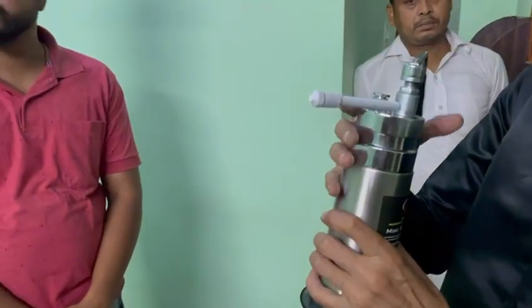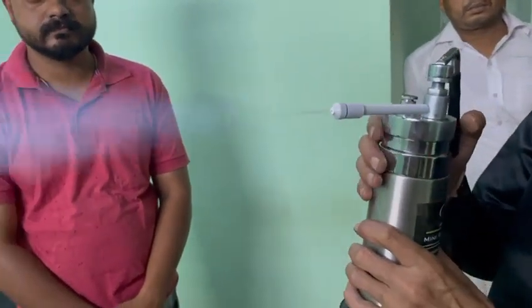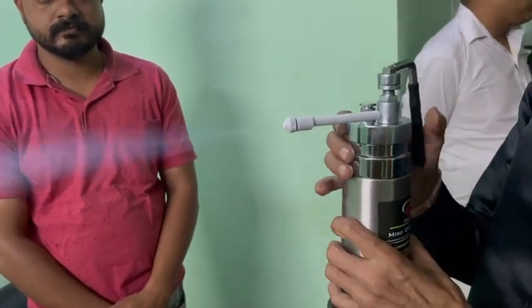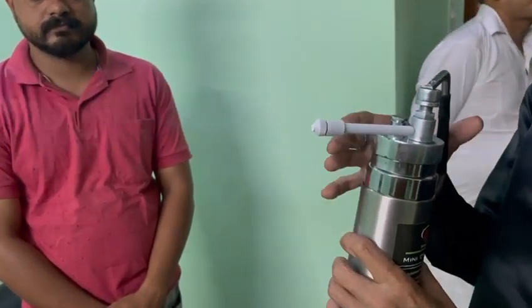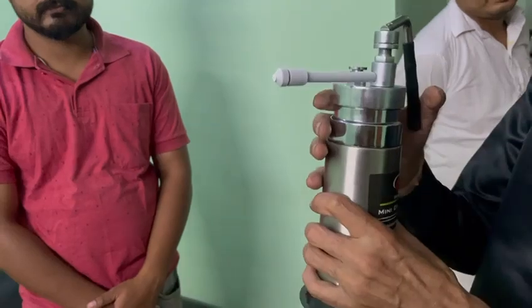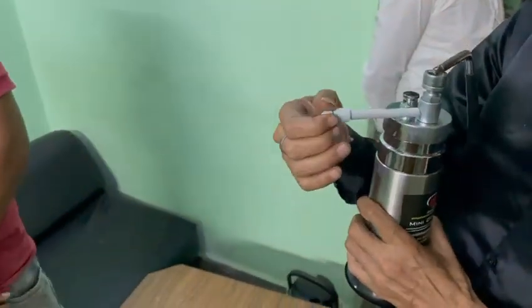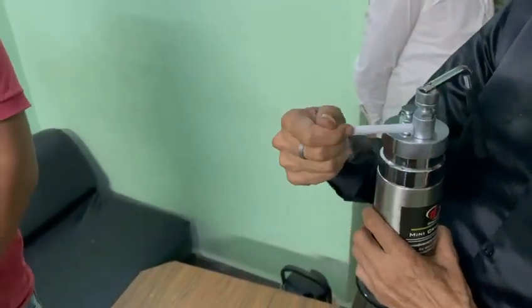Please note, we do not supply filled cryogen — we will supply only empty cryogen. Because after 10 to 15 hours, it will automatically become empty. So please fill it as per your requirement from time to time. Thank you.